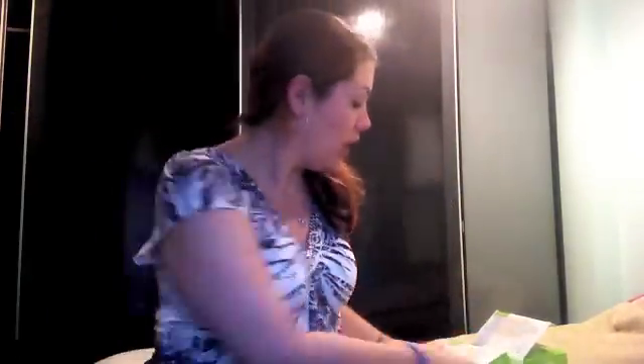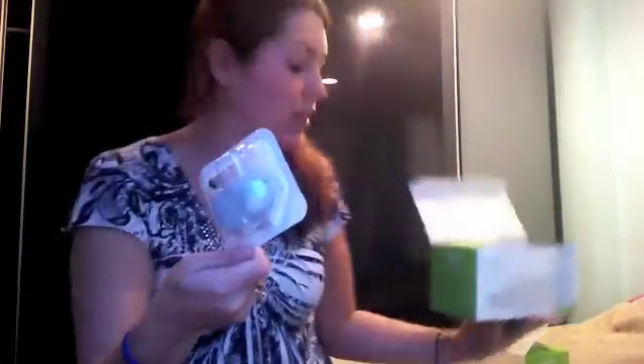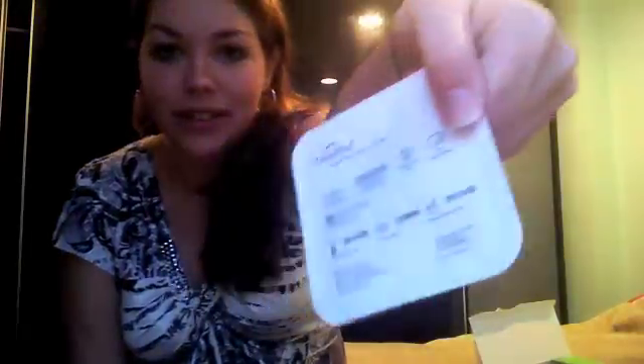Every shipment I receive a box of Omnipods — three boxes just like this one. Inside I've got loads of Omnipods; each box has a month's supply. Now my machine is asking me do I want to activate a pod now. I don't have any insulin coming into my body right now, so I need a pod.